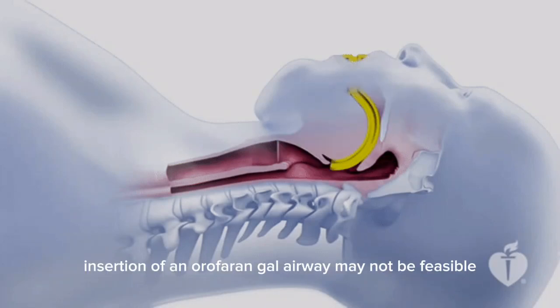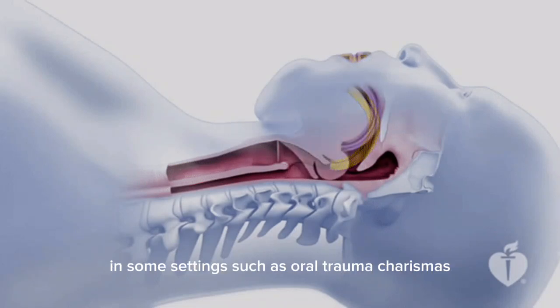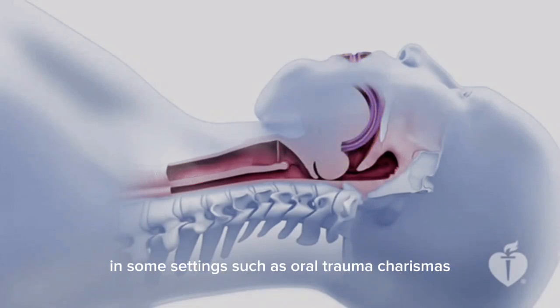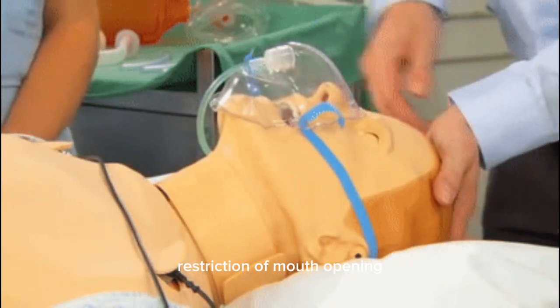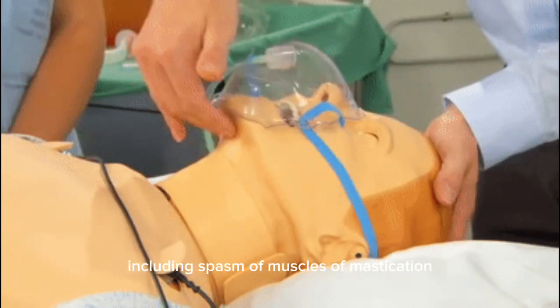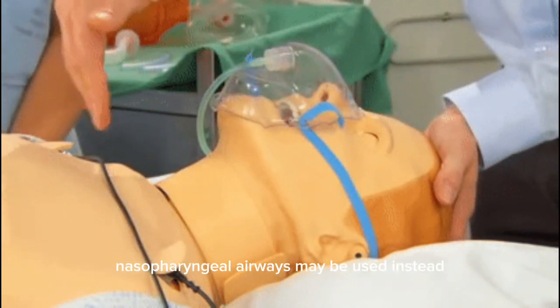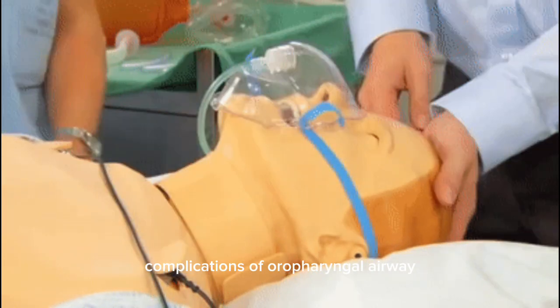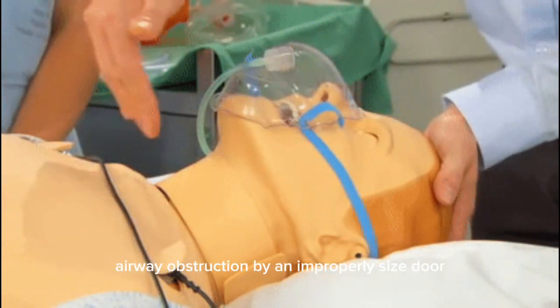Contraindications for oropharyngeal airway — absolute contraindications: consciousness or presence of a gag reflex. Relative contraindications: insertion of an oropharyngeal airway may not be feasible in some settings such as oral trauma, trismus, or restriction of mouth opening including spasm of the muscles of mastication. Nasopharyngeal airways may be used instead.